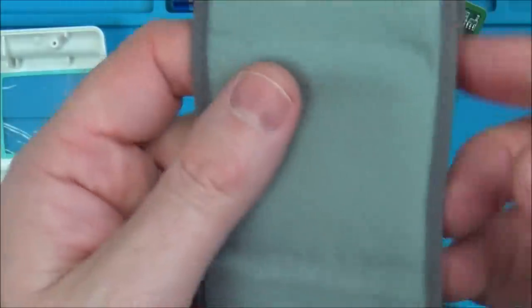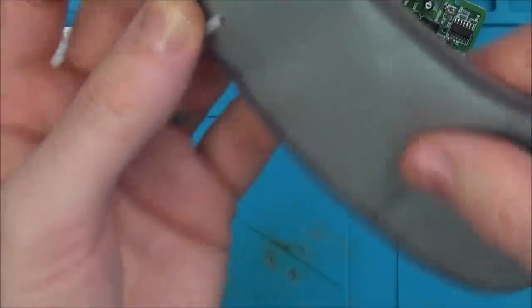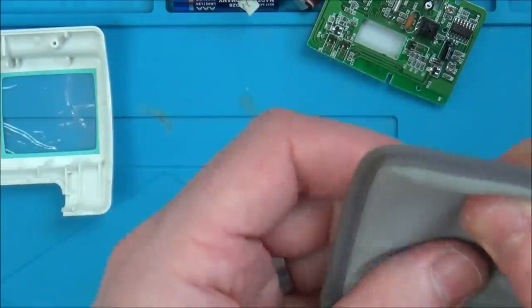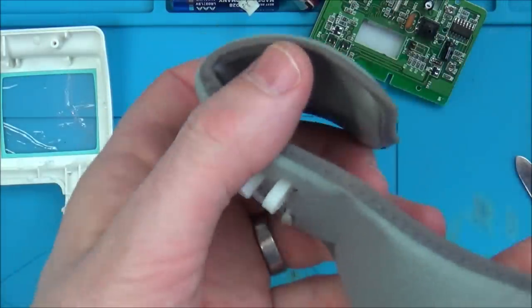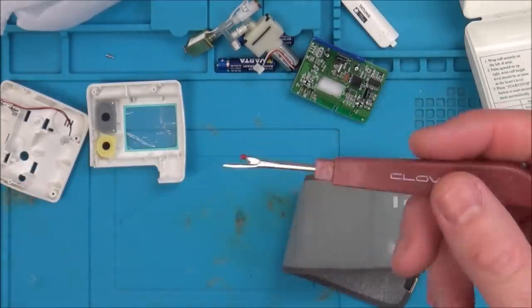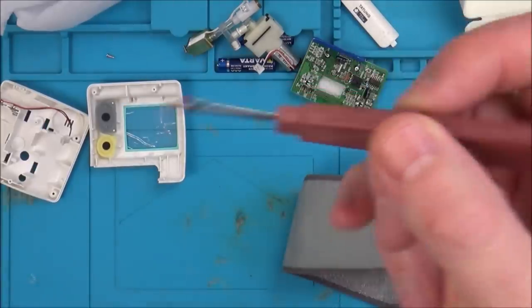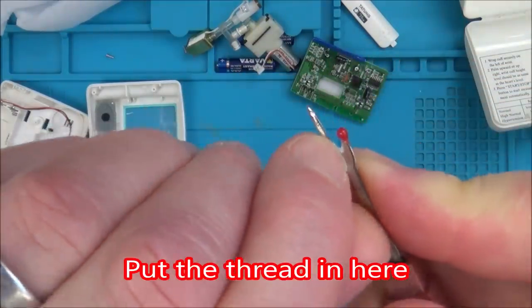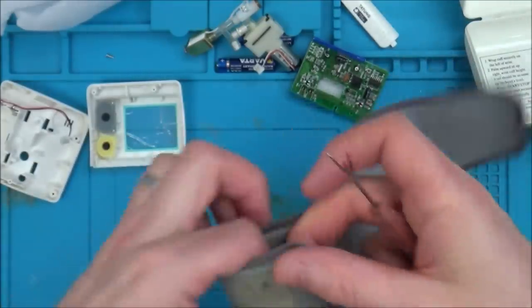So I think what we're going to have to do is unstitch this. It goes all the way to here and all the way to here - it's not just this bit. So I think I'm going to unpick this end bit because we have quite a lot of movement here. This tool is what I use to unpick seams - on the Womble and the pull string toys, you know. You can get them for a couple of pounds off eBay, they're not expensive. The idea is you put the seam in there and that little blade in the middle cuts it.